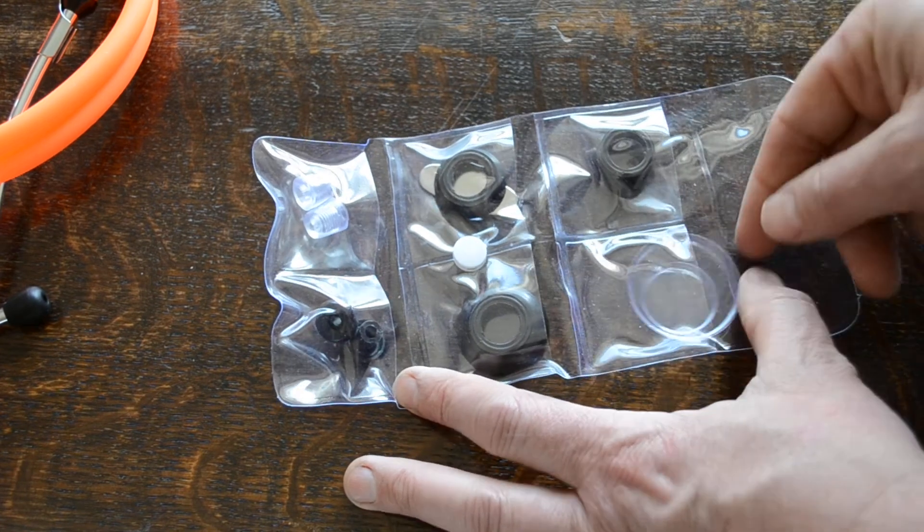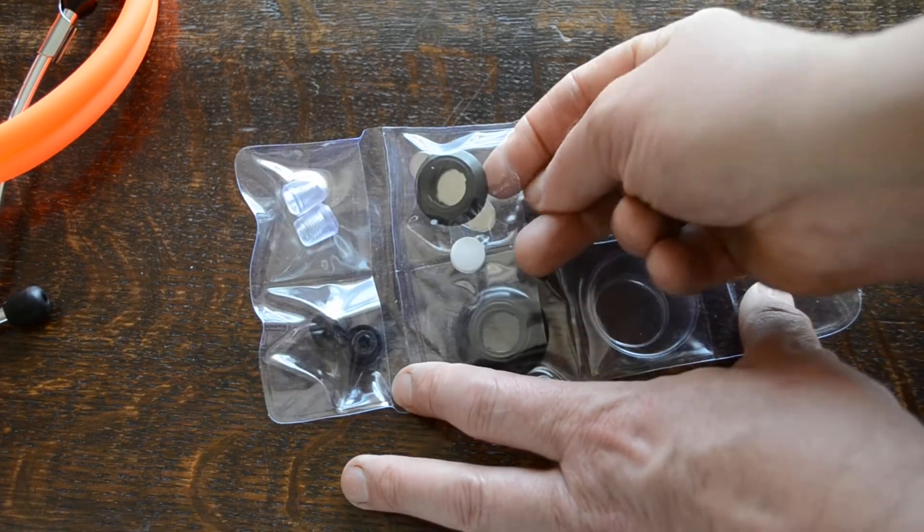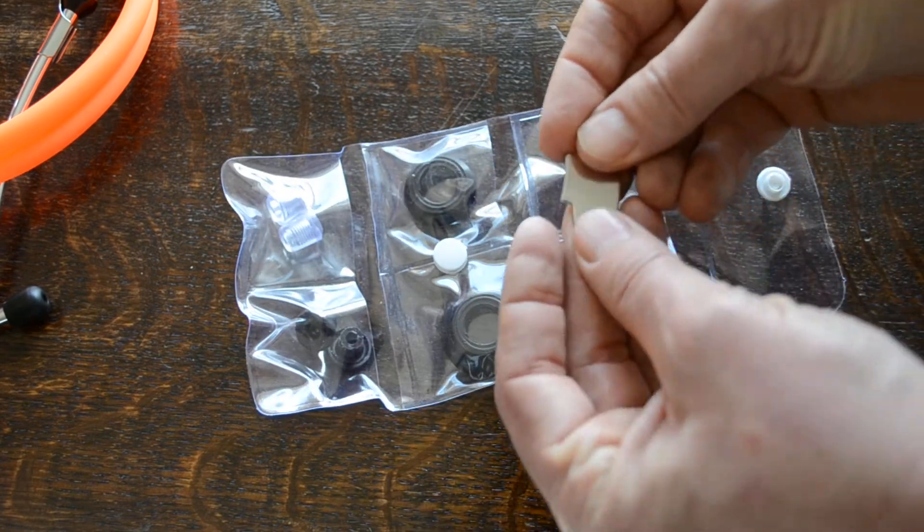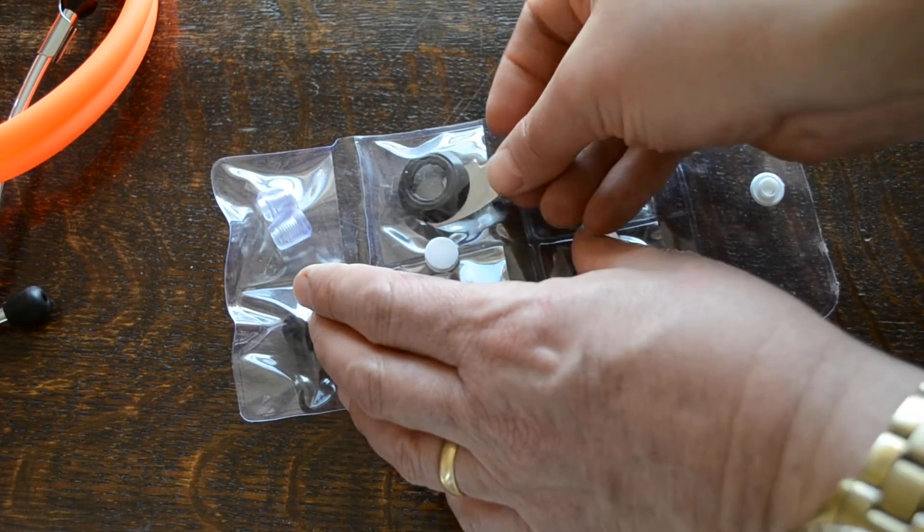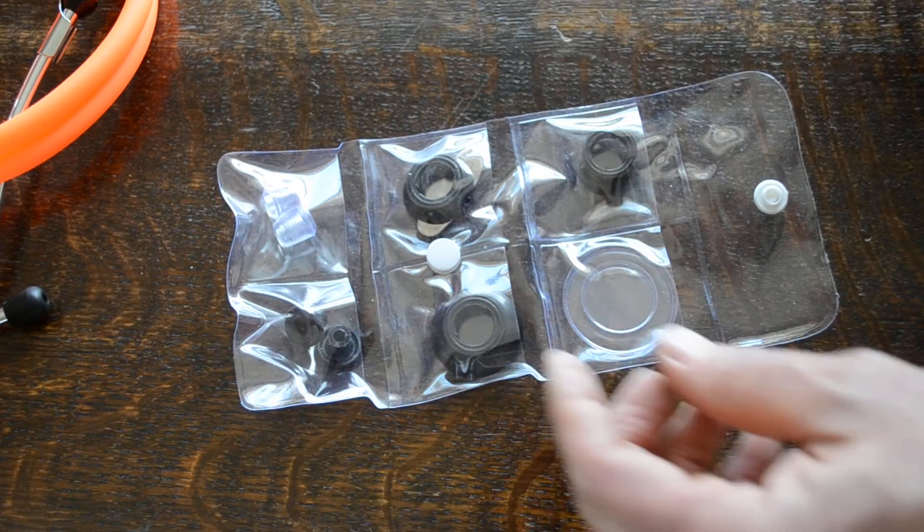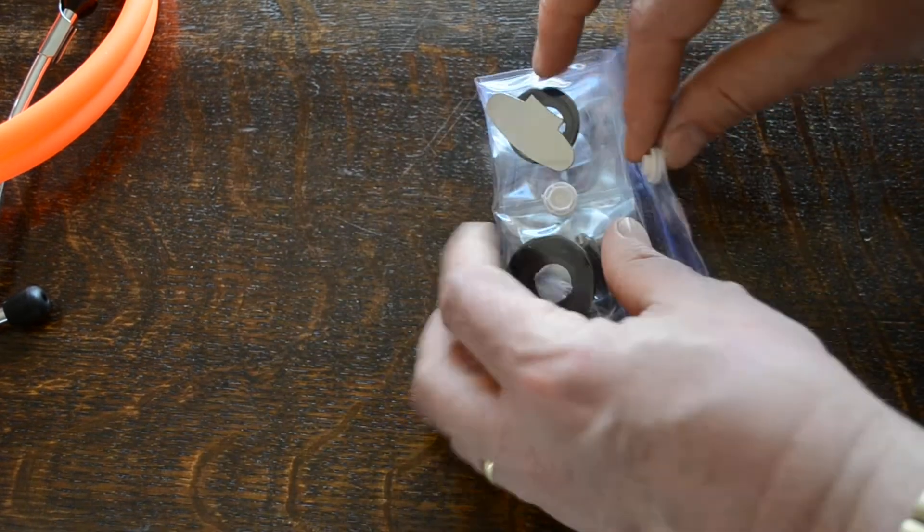You've got two spare diaphragms, pediatric and adult. And I think you've also got in here the ability to put a name tag on it. So you can have that engraved in this particular model. I think that's only available on the orange one actually, that pack.